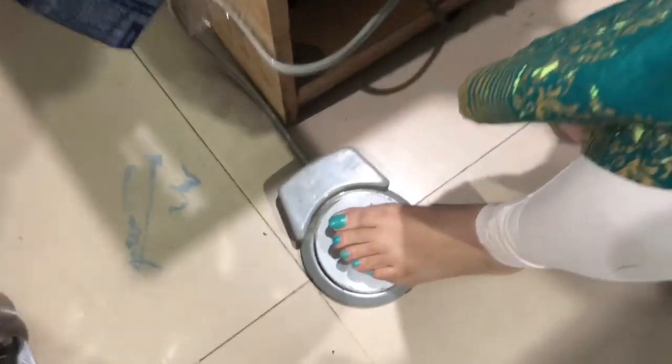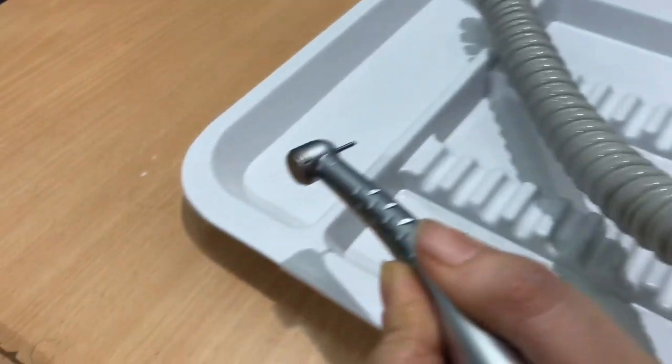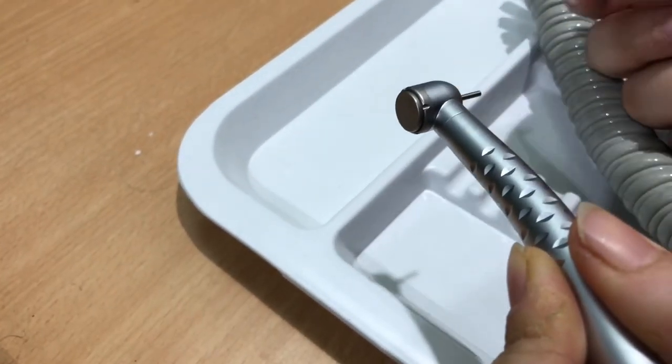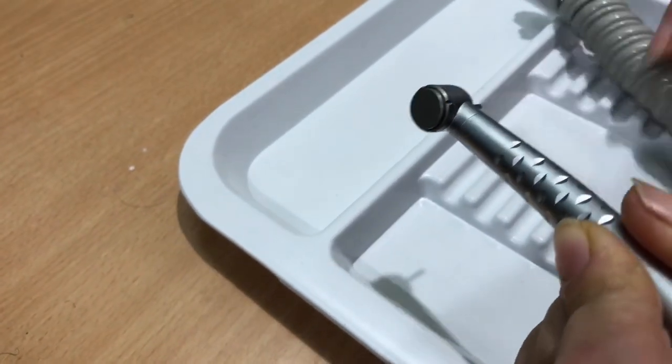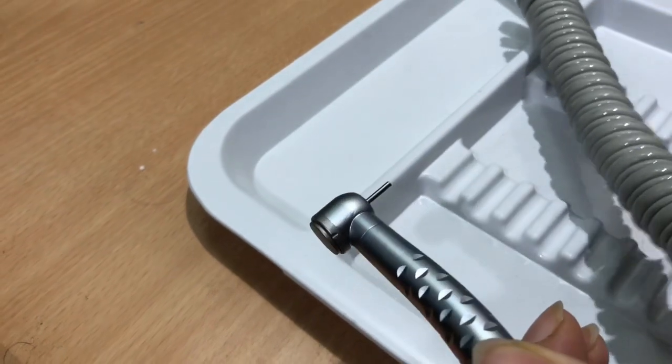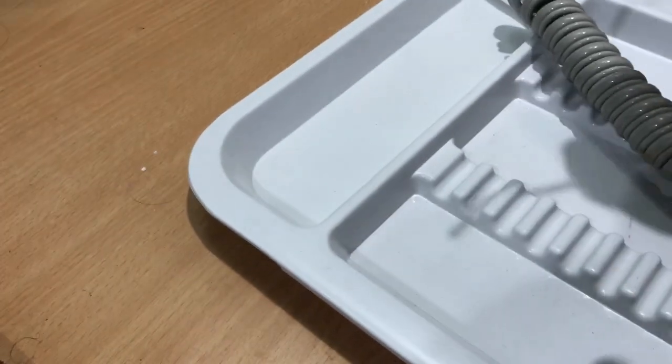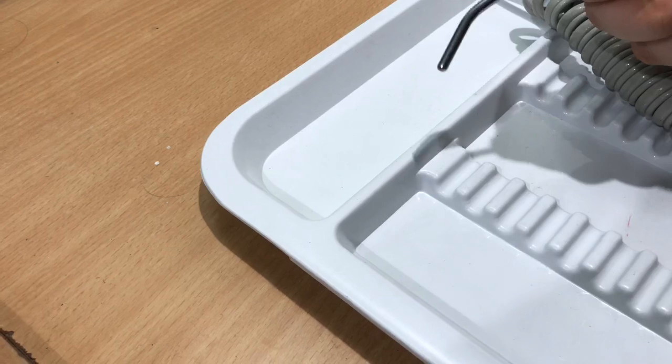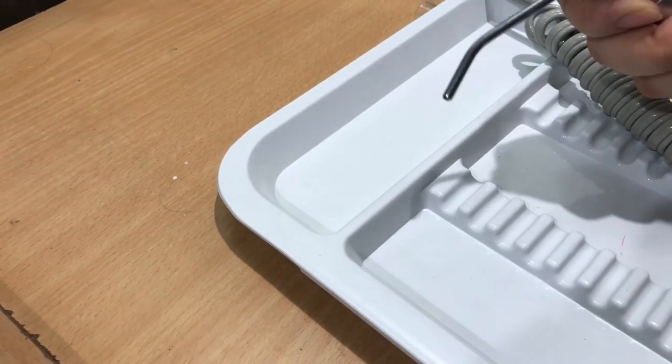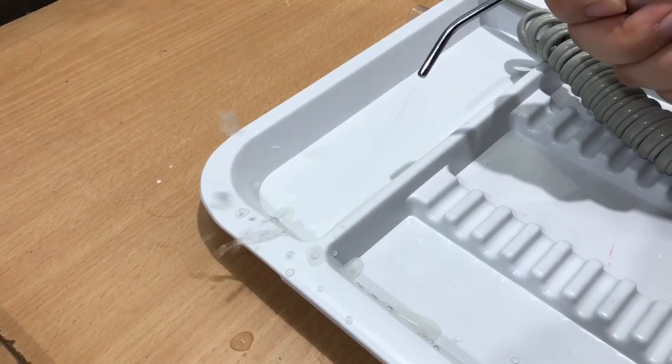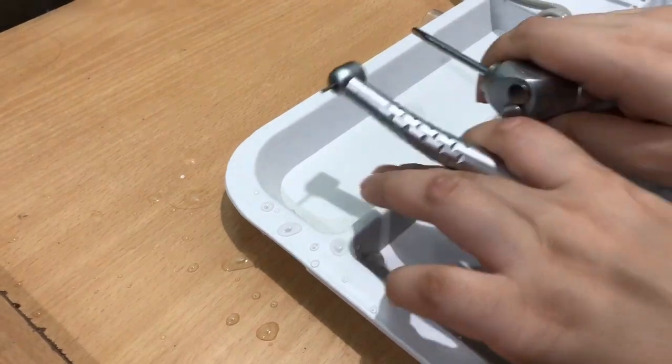And now you can see my airotor start working. Let's start working right now. Hear the voice and you can see the air is coming, the water is coming. So it's absolutely working.